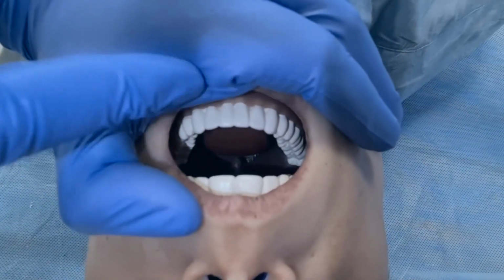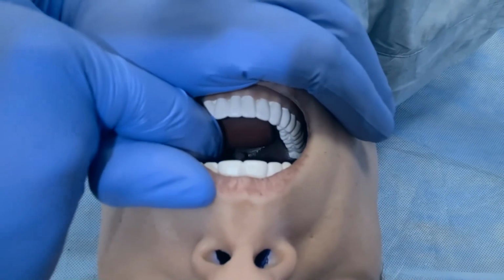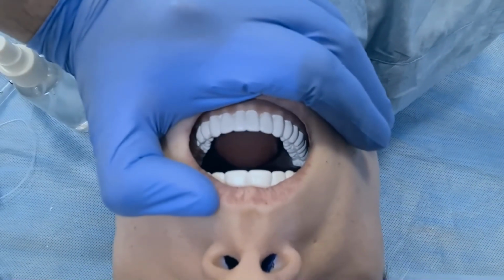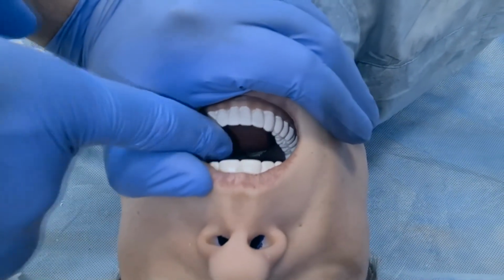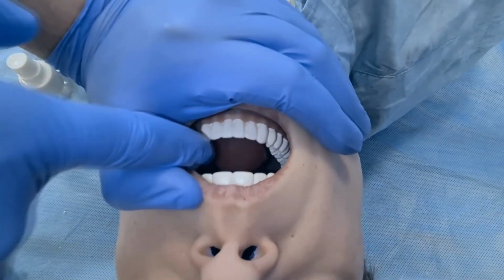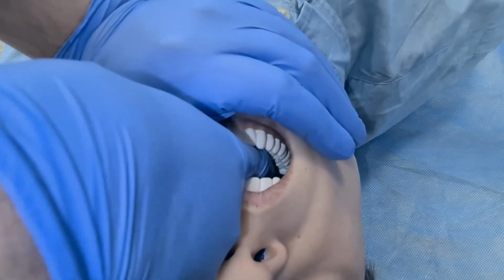Let's have a look at Leonardo's soft tongue, and we have two settings here for tongue edema, 50% swelling, there it is, it's nice and soft, and 100% swelling. And when we're switching from 50 to 100%, we got to give it a few seconds to deflate and then inflate again. And what's nice about it, that it's nice and soft, and you can try and go around it, for example, like this.